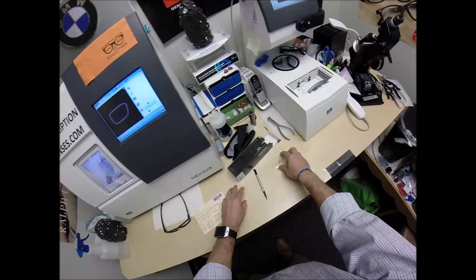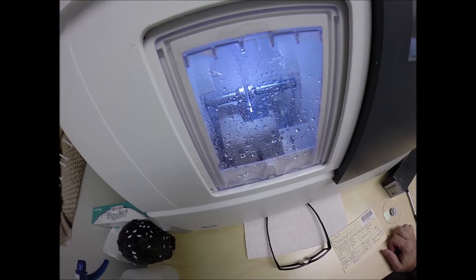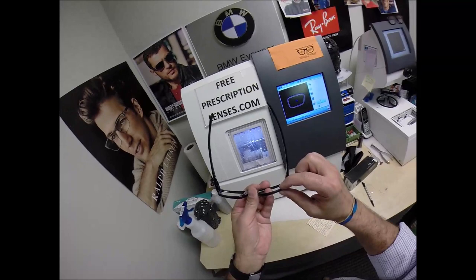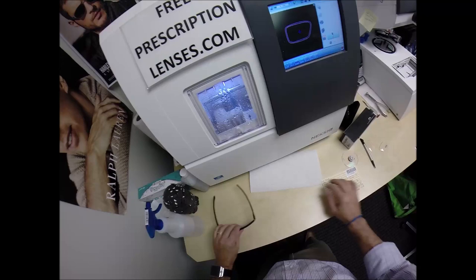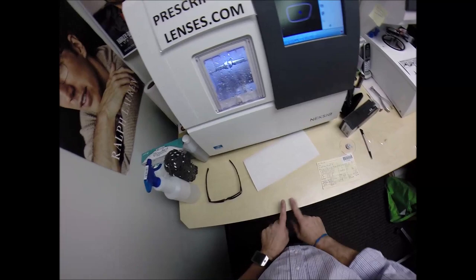So water has begun spraying on the lens as it tells me it's in the last 20 seconds of the cutting cycle. In just a moment a little lever will come out and put the safety bevel on the rear concave surface of the lens. Cue the lever. So what I'm doing is I'm going to smooth out the very back surface of the left lens, the back surface of the lens, so it's nice and smooth when I push it into the frame.